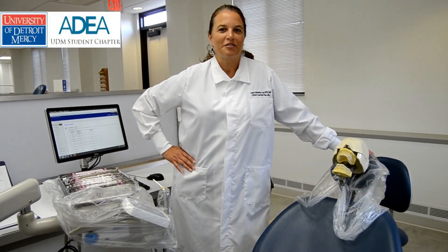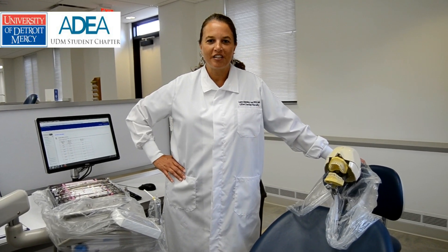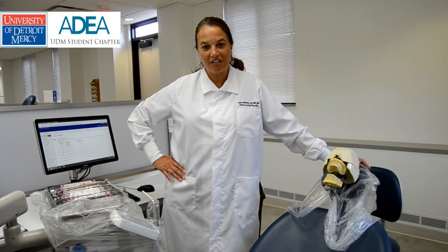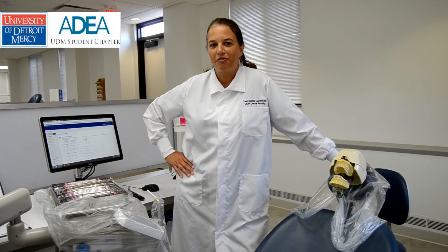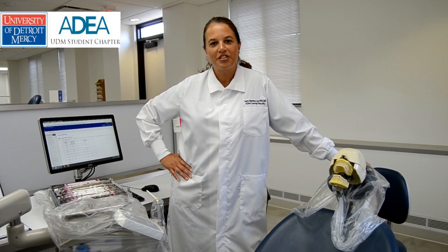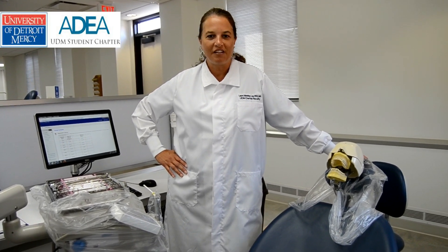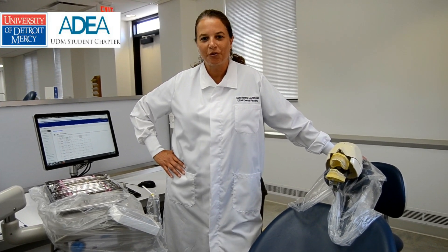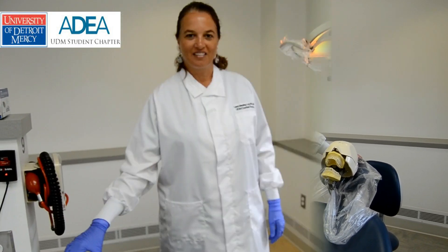Hello, I'm Professor Laura Manning Lee. I am going to be going over some general criteria and specific criteria for instruments. I am one of your pre-clinical faculty here at University of Detroit Mercy School of Dentistry, and this is for the DPE 8111 Periodontics course — the clinical portion of that course.